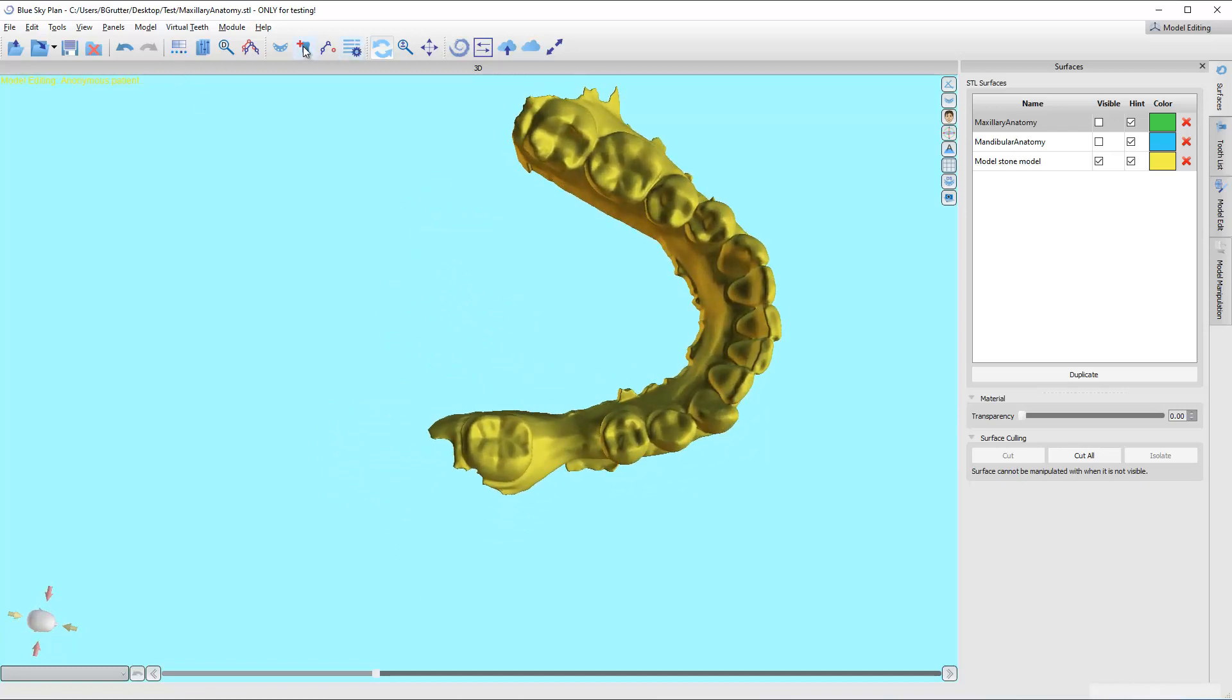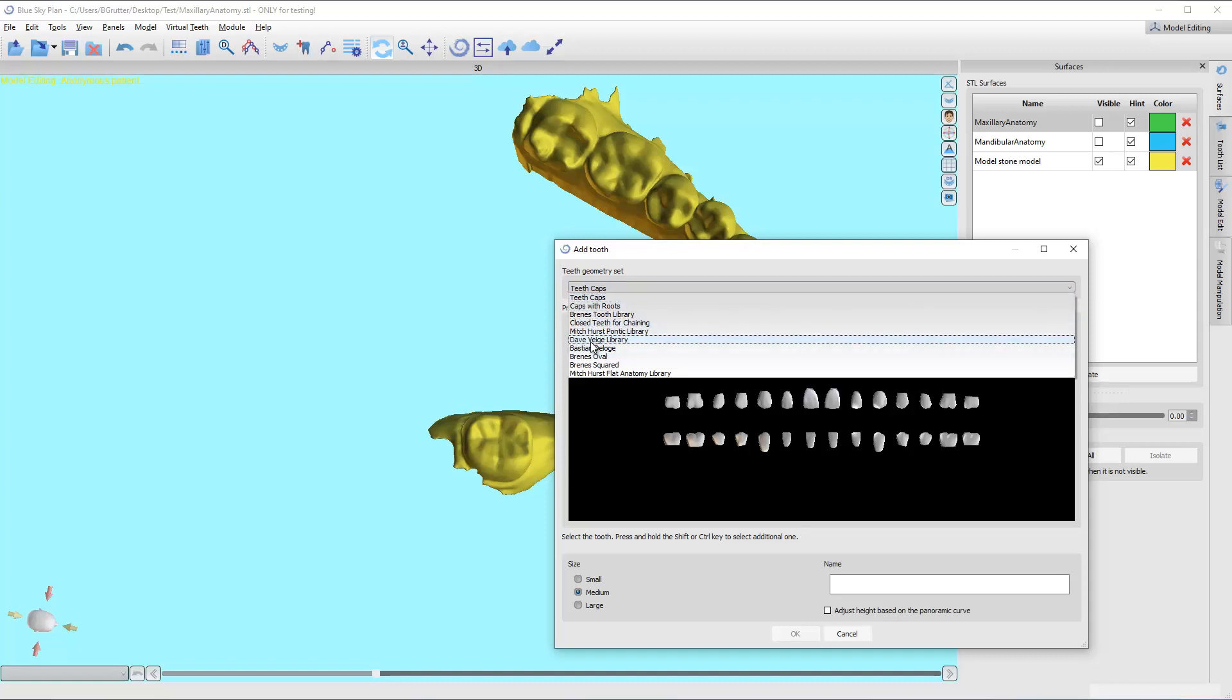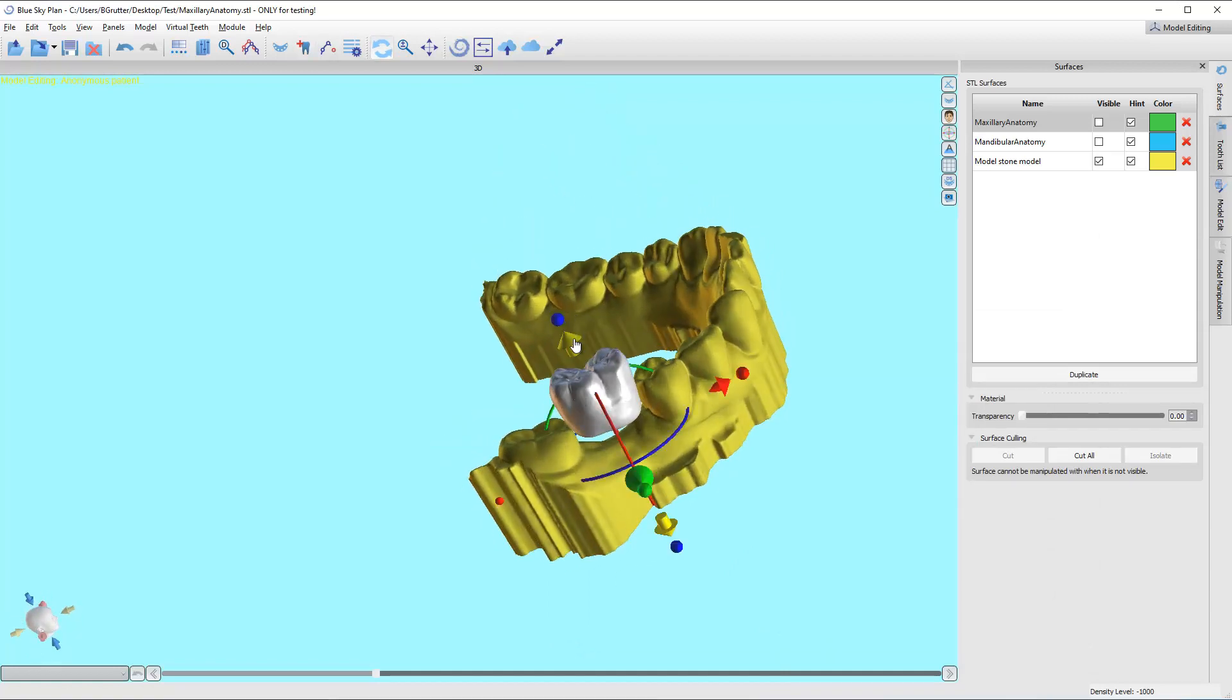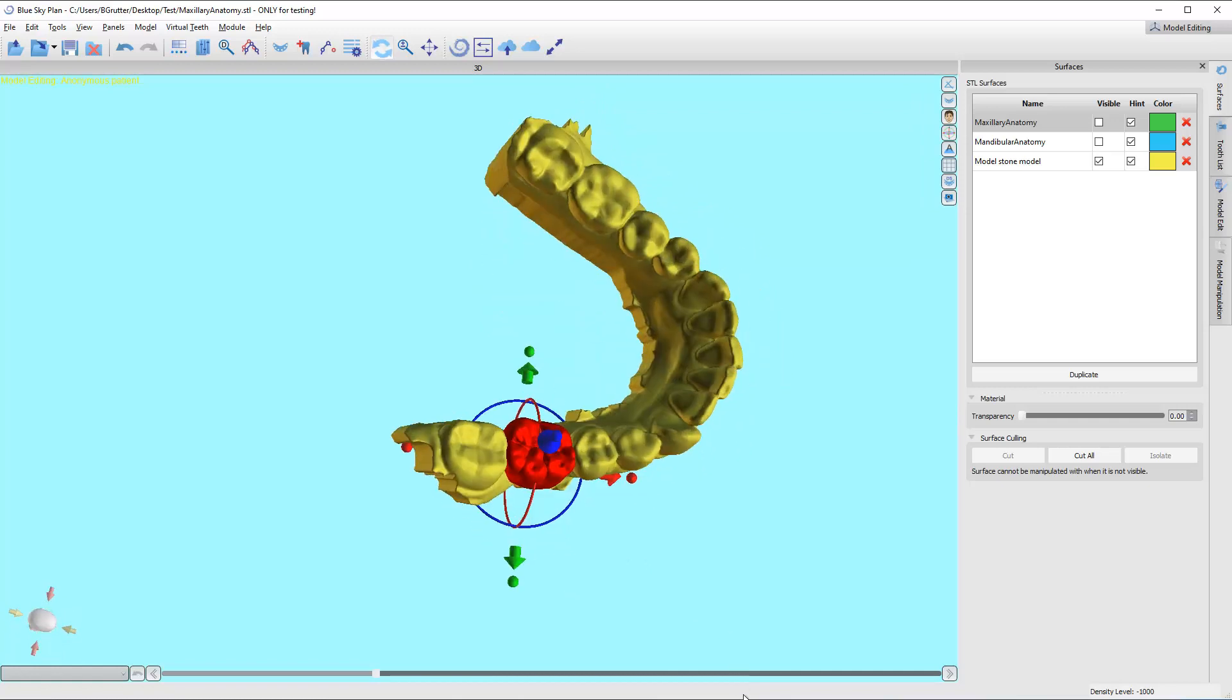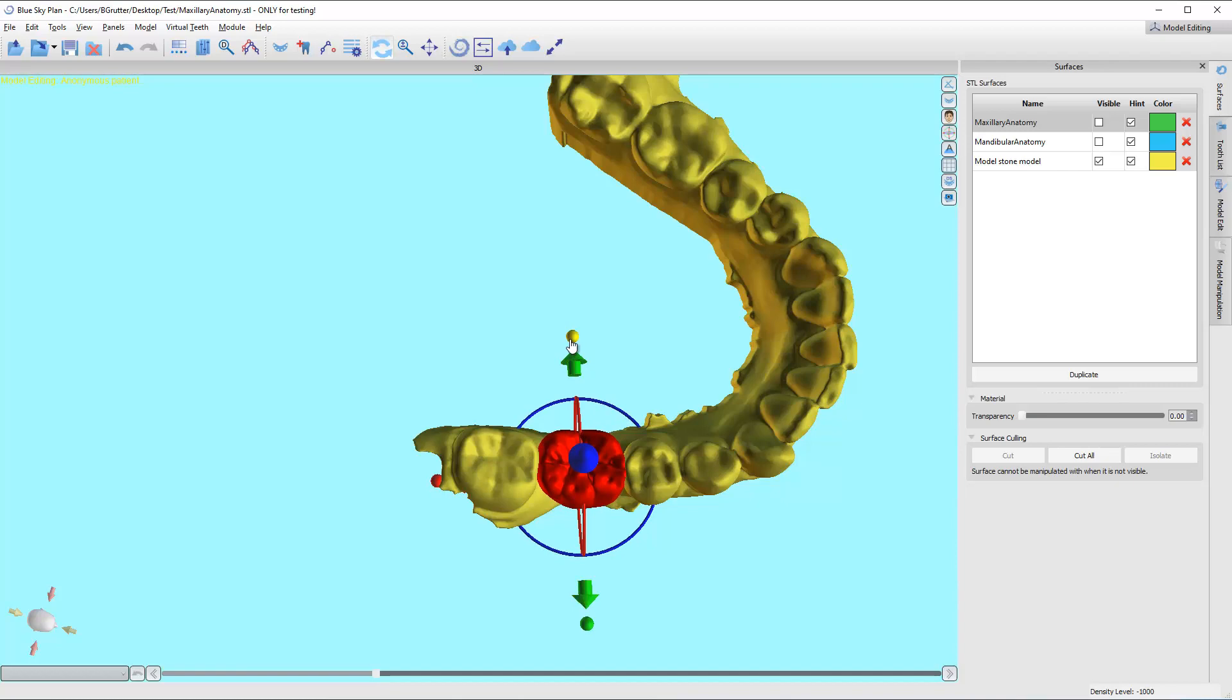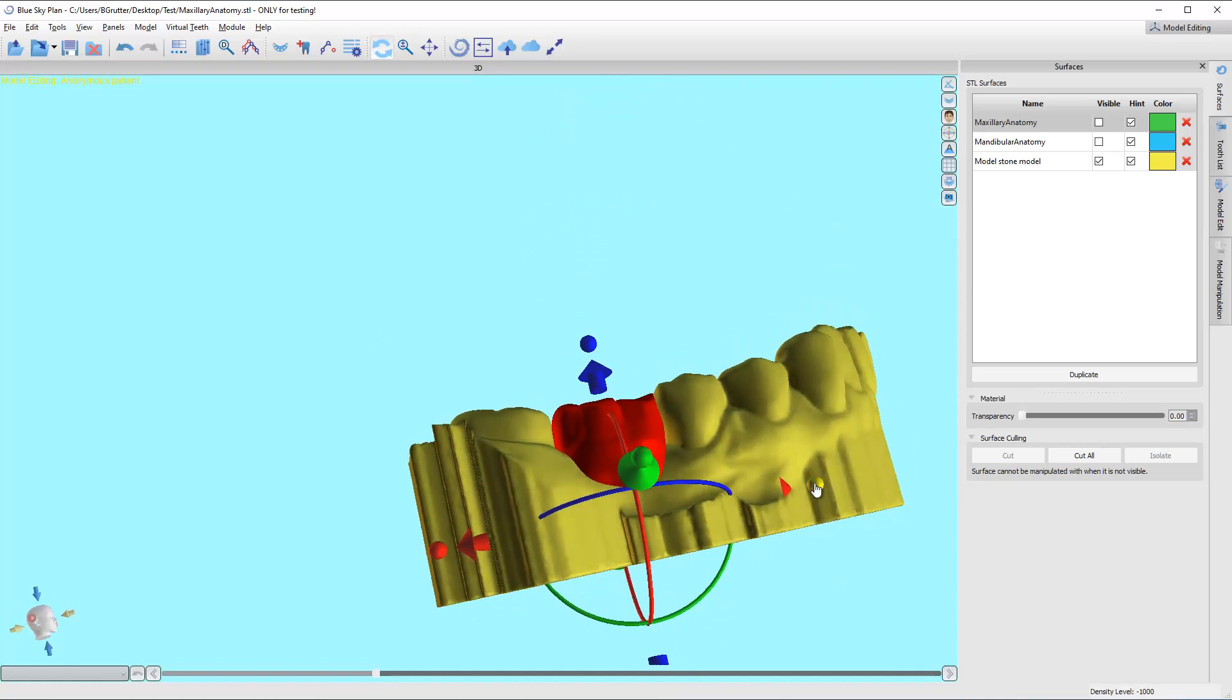I'm going to come up here to this plus tooth button, which is add a tooth, and I get all these different libraries up here to pick from. In this case, I'm going to use Bastion Delage's teeth here, and I'm going to pick on this one, and I'm going to say okay, and I'm going to click right where I want it. It's not going to be right where I want because it's high. I'm going to bring it down here, and I'm going to line it up.